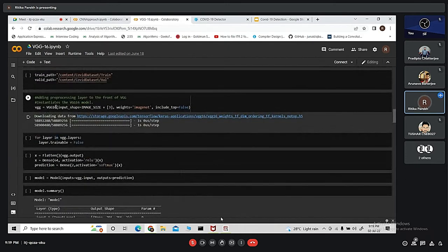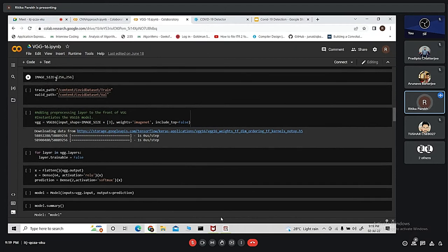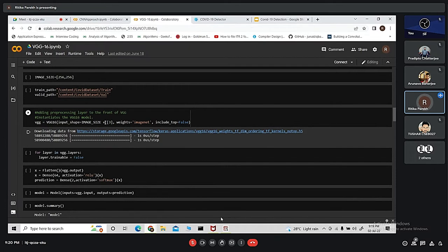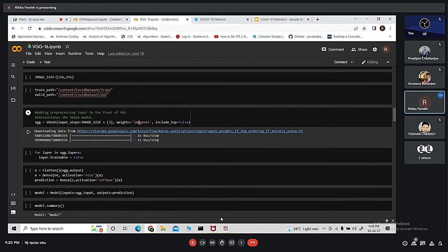We are basically instantiating the VGG16 model. We are specifying the input size, input shape, which we have specified as 256x256x3 because our image is in RGB. Weight we are specifying as ImageNet because we need pre-training on ImageNet. Next is include_top equal to false. This is used to either include the last layer of the VGG16 architecture or exclude. Here we are excluding.